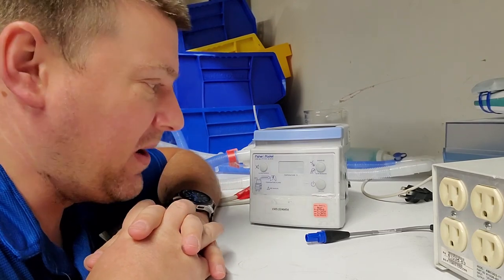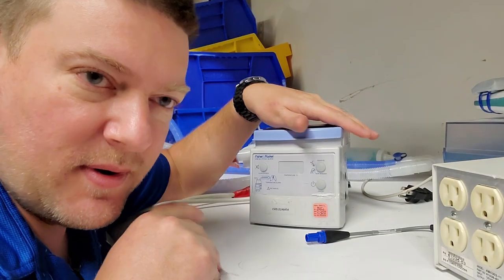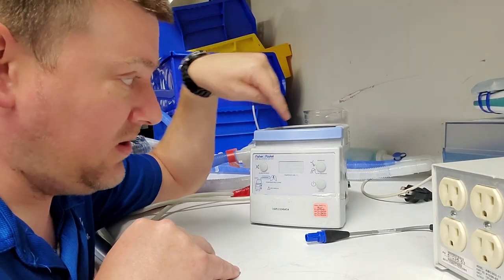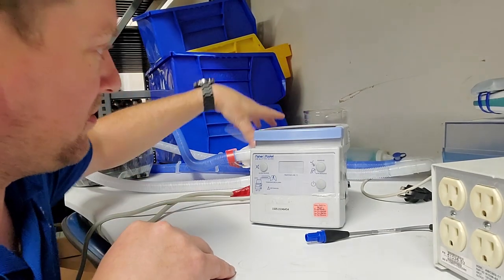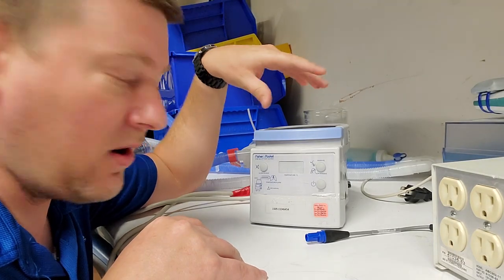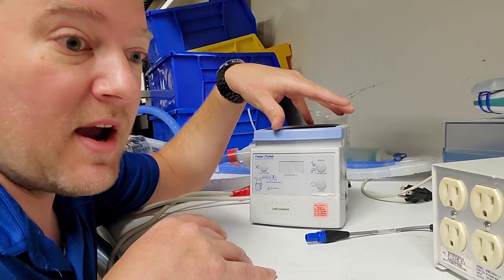Hey guys, welcome back to Better Biomed. Today we're going to do something simple: this little guy right here is the Fisher and Paykel humidifier. They use these with breathing circuits, usually for pediatrics or people that are going to be ventilated for long periods of time, because ventilation gases are kind of dry.